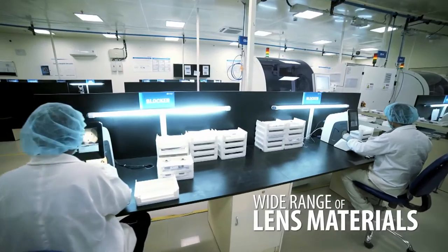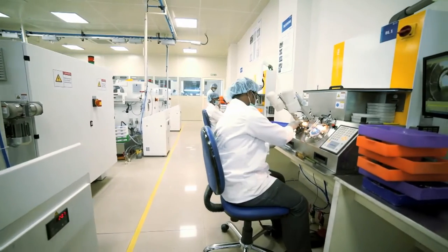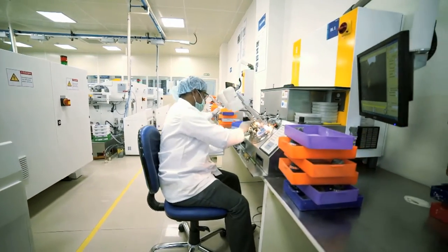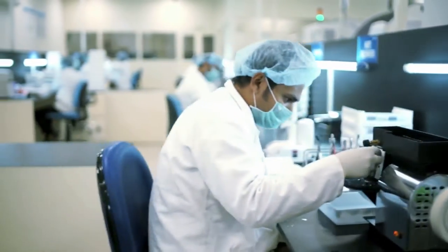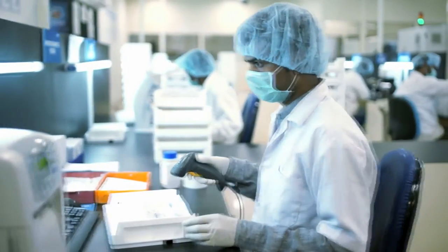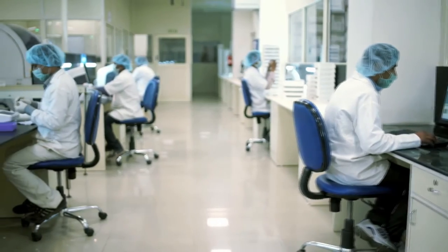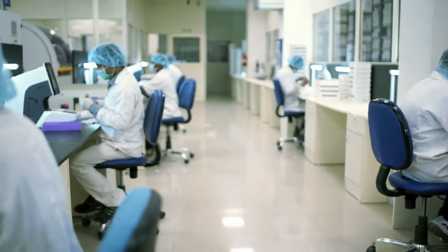Vision RX Lab handles a large basket of lens materials such as CR-39, polycarbonate, Trivex, high index 1.60, 1.67, 1.74, in clear, Transitions, sunlight, photochromic, polarized, and the latest Blue Max.